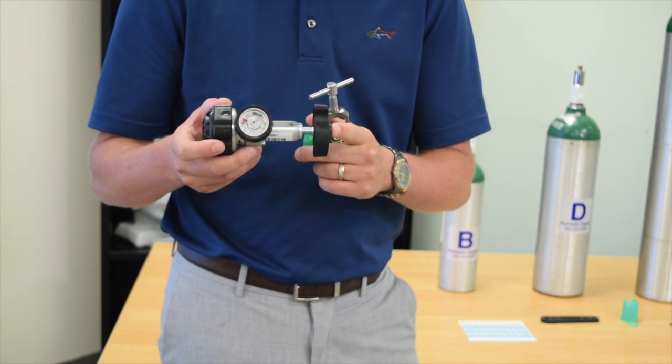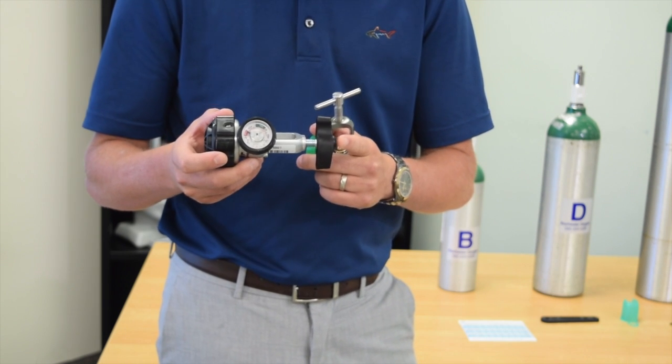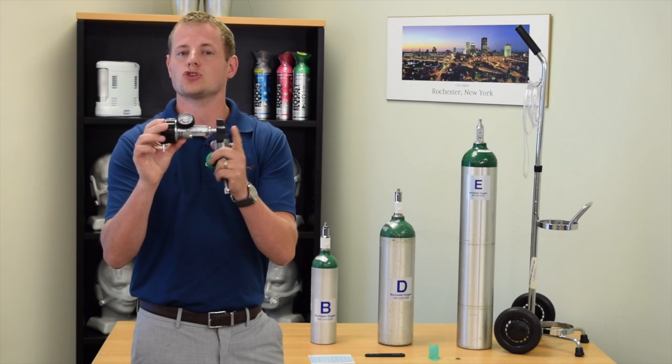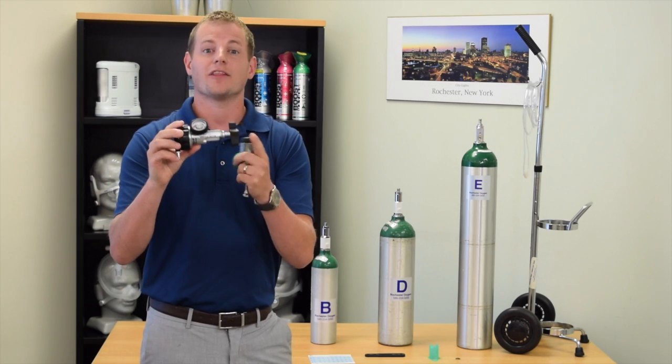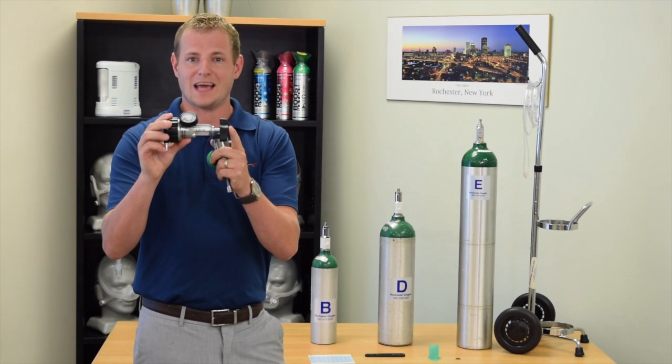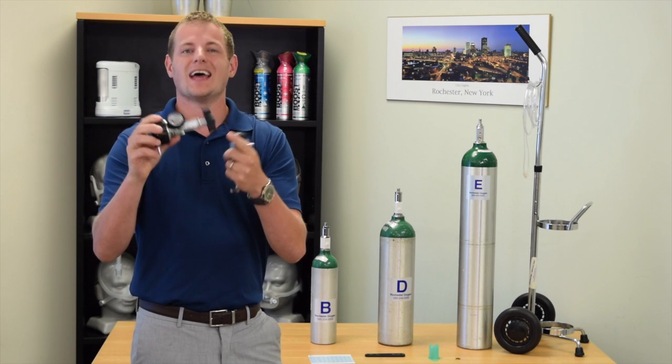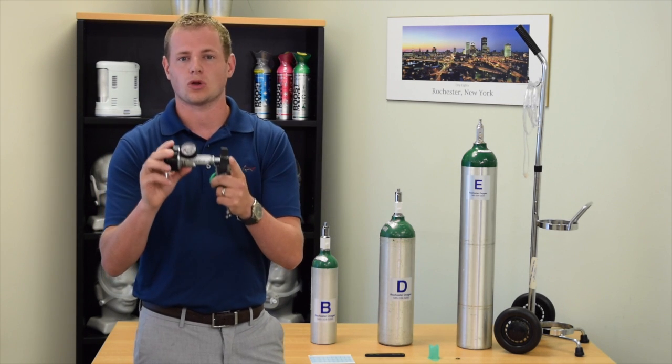What makes this unique is it requires the patient to initiate a breath in order to trigger the flow of oxygen. Thus, the patient only gets oxygen when they actually take a deep breath and allows the tank to last longer.